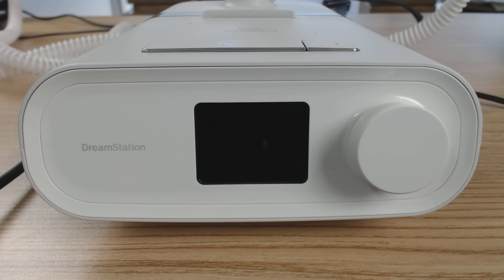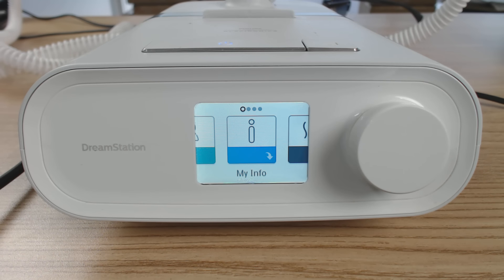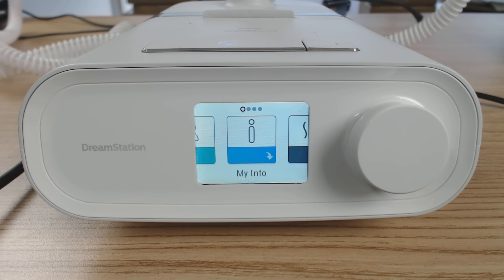Your clinical menu is where your healthcare professional would normally go to change things like your CPAP pressure. There's a little bit of a trick we need to do in terms of holding down certain buttons. Having access to the clinical menu enables you to fine-tune your therapy to make it more comfortable, so you're going to get a better night's sleep. Normally you have to go back and forth to your provider to do this — it's time-consuming and annoying. So this enables you to take control of your own therapy.